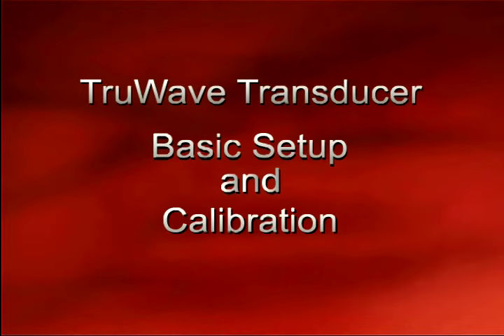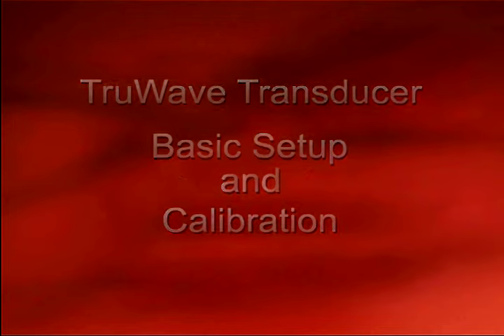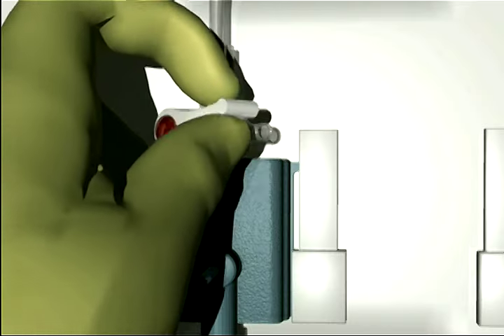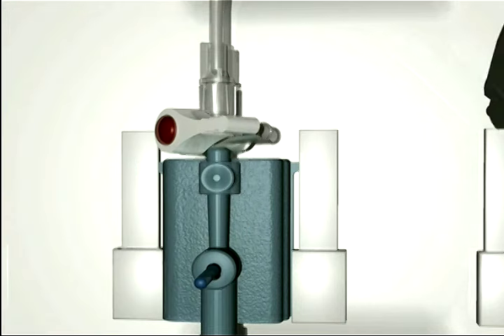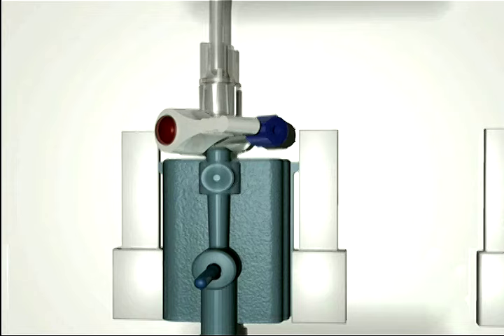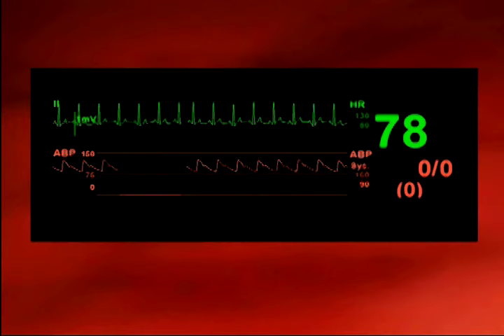Intravascular pressure monitoring setup with the TruWave transducer. Bedside measurement of intravascular pressures is a basic tool in the care of the critically ill patient. The following animation demonstrates best practice in the setup of the TruWave disposable pressure transducer.